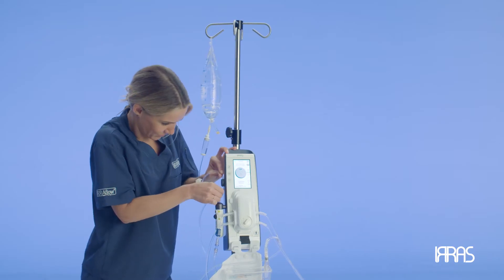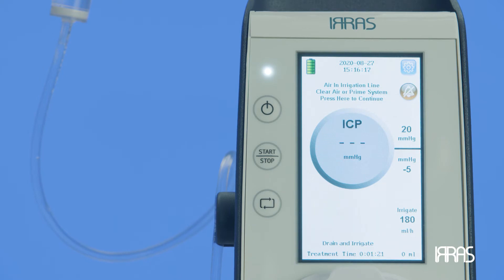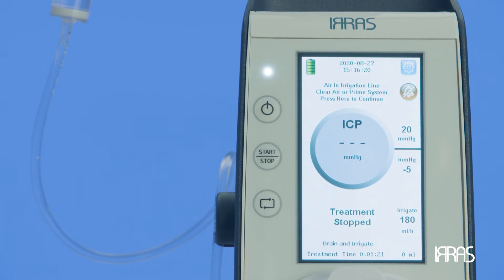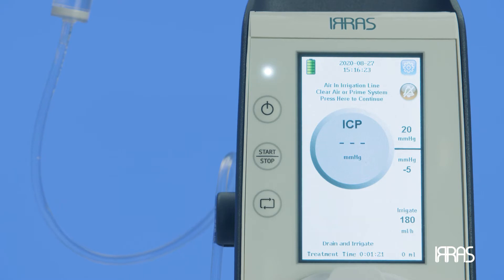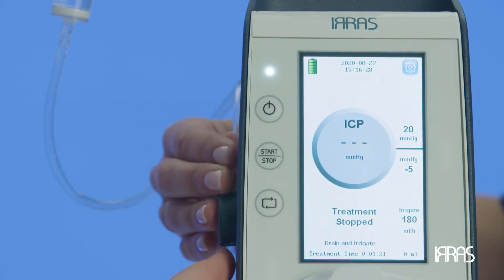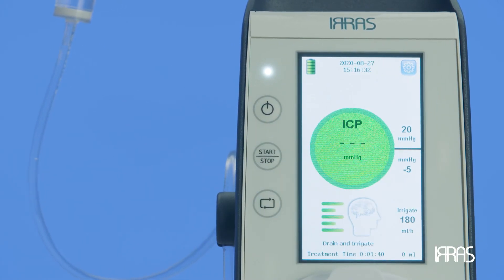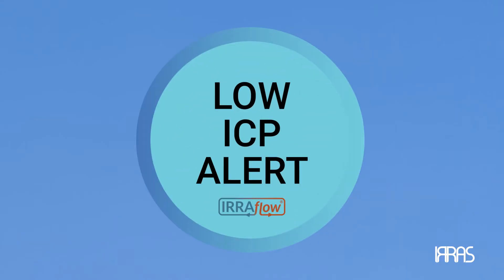If the control unit senses that the issue has not been resolved, it will continue to alarm. If the control unit senses that you have properly dealt with the alarm, it will return to a normal operating state. This alarm causes the control unit to pause treatment; you will need to press Start to resume treatment. Your settings will be the same as previously entered.